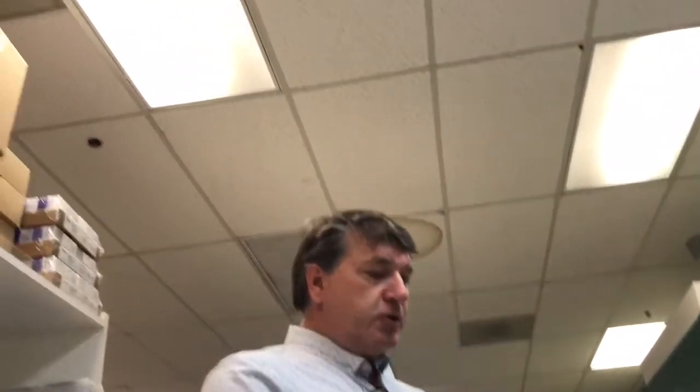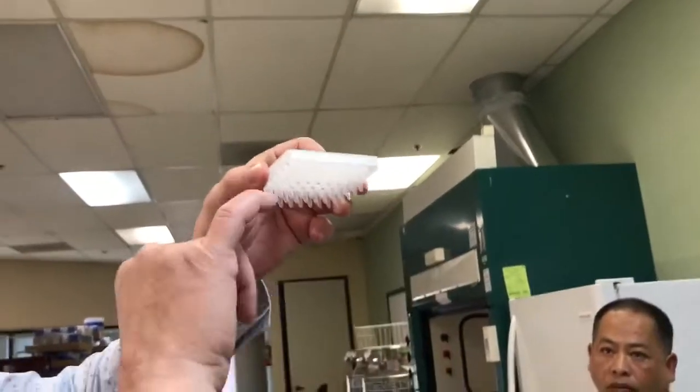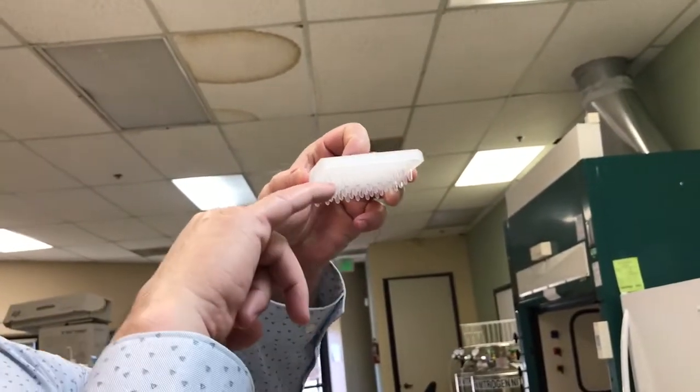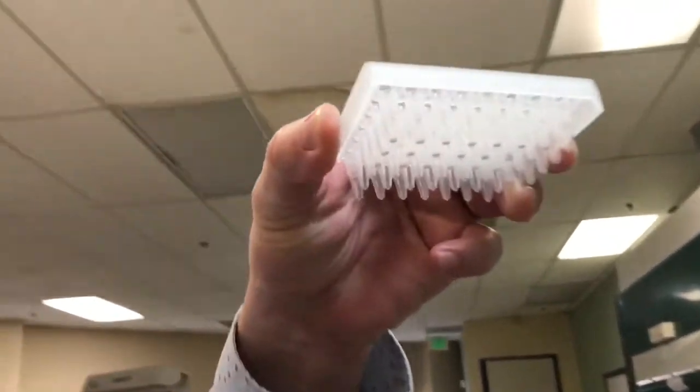Where's the kit? What does the kit look like? The one that has the 100 — the box. So those boxes, the liquid volumes are tiny. This liquid here, when we fill this up with the reagent, it only goes until about that high each test. It's only like one fraction of this entire tube.